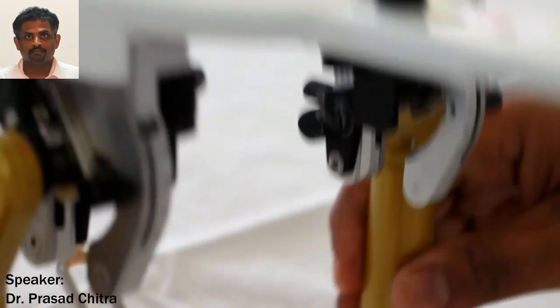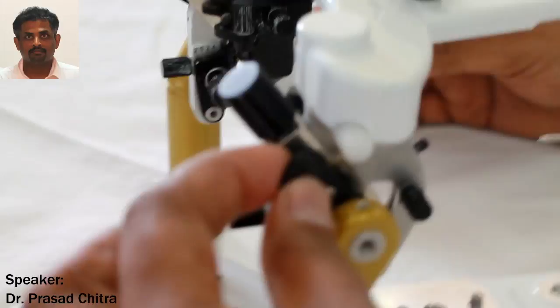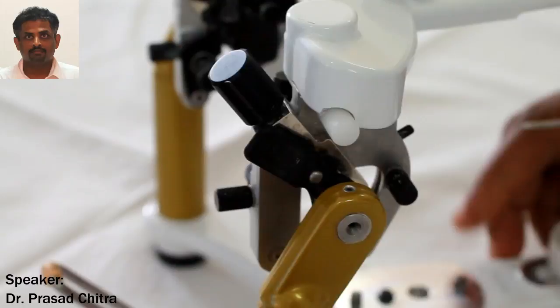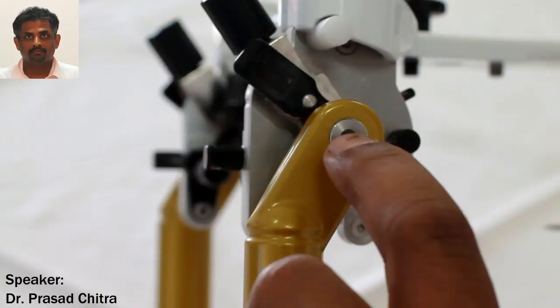The articulator basically has a lower member and an upper member which are connected with the help of an elastic rubber band. This elastic rubber band can be disengaged and the entire upper member can be disarticulated from the lower member for servicing and cleaning, and can be reattached once again. The round metal rings that you see are the points of attachment for the face bow to the articulator in a direct model transfer where the face bow is brought to the articulator.